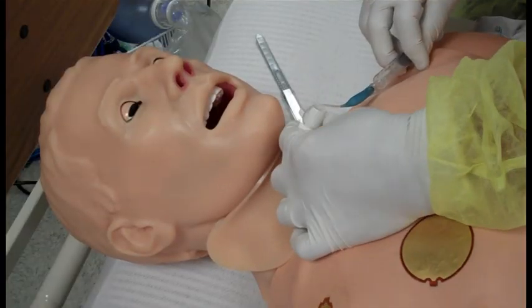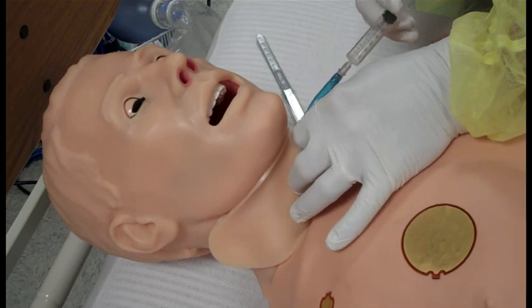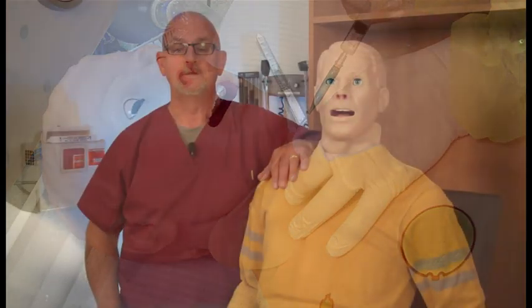Airway access can be obtained through the cricoid-thyroid membrane in the event that Hal cannot be intubated orally or nasally. When simulating drug administration via endotracheal tube, providers must use an empty syringe. Passing liquids into the trachea or esophagus may cause internal damage.